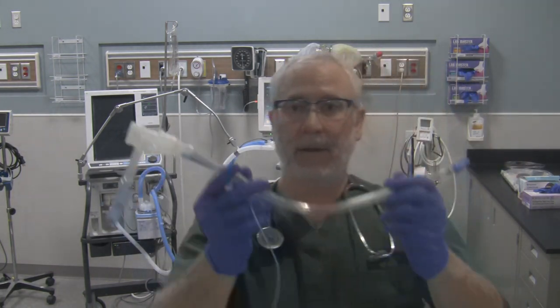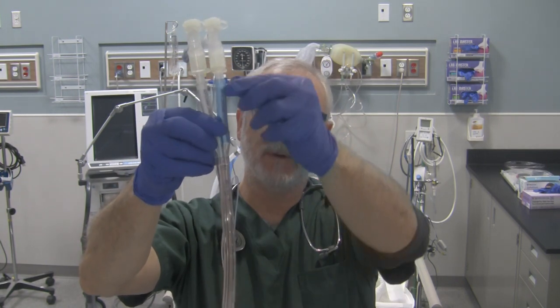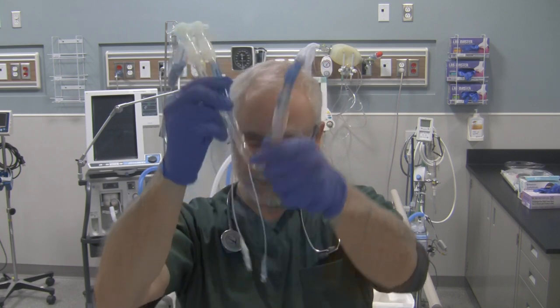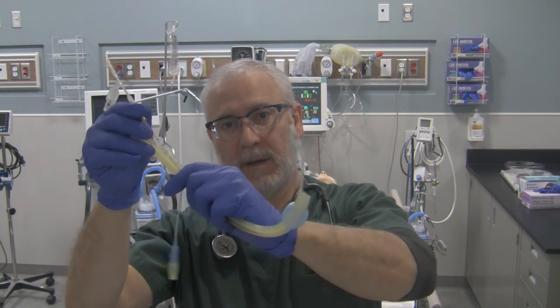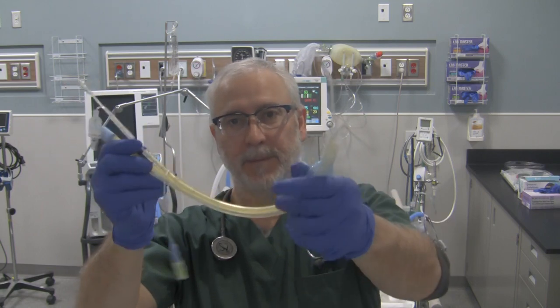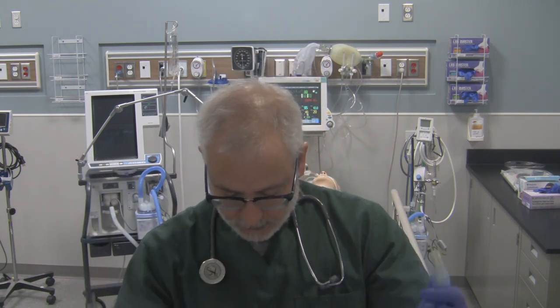We also have the endobronchial or dual lumen endotracheal tube — an endotracheal tube with two lumens: a bronchial tube and a tracheal tube. One lumen ventilates below the cuff sitting in the trachea to independently ventilate one lung, while the bronchial cuff sits in one of the main stem bronchi, giving you independent lung ventilation. We also have the endobronchial blocker, which looks like a regular endotracheal tube but has an extra sheath. Under bronchoscopic observation, you can advance this distal catheter, inflate it with gas, and plug off a particular bronchi — a lobar or even segmental bronchi — to occlude one area of the lung for specific lung surgeries.